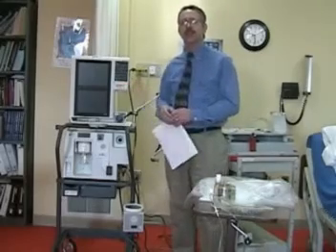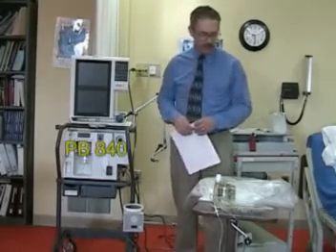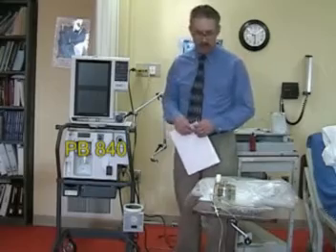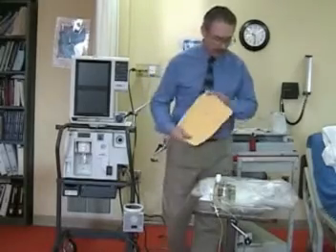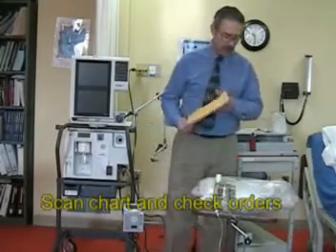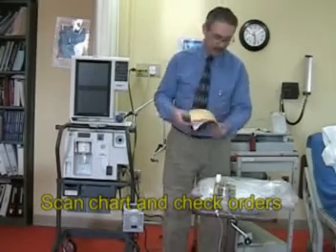This is a checkoff for the 840 ventilator using the initiation of continuous mechanical ventilation found on page 575. So first off, what you want to do is obtain the physician order and scan the chart.